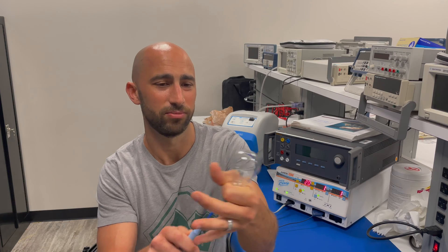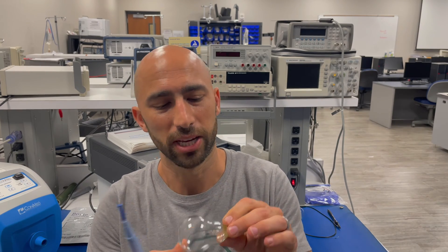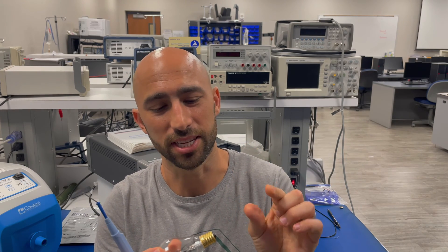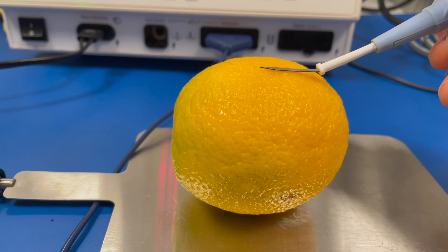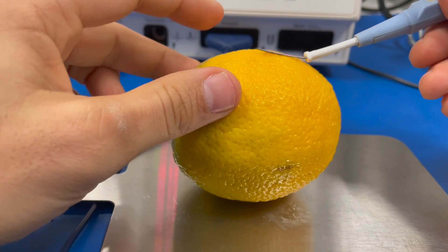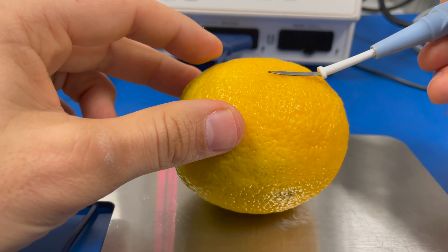Now I'm not hurt or anything like that, but electricity is passing through my body. You may want to know how I'm able to do this safely — well, I wouldn't say it's exactly safe — but I'm able to do this because I'm keeping the current density through my skin low. In order to show you the effects of current density, I'm going to apply this electrode over a large surface area.